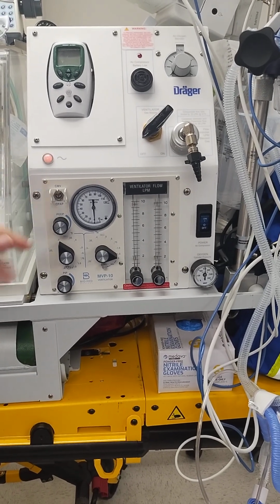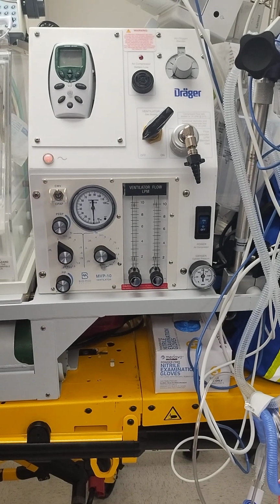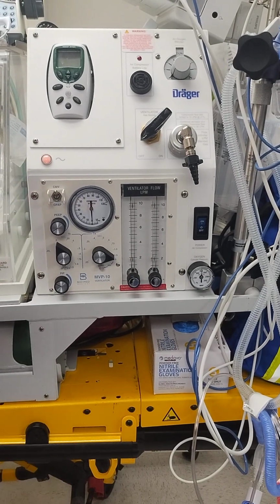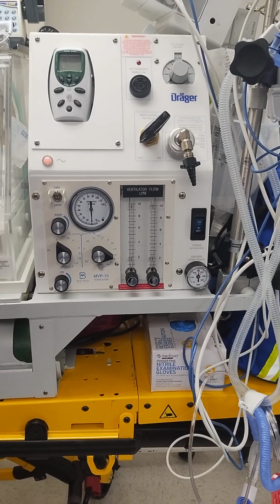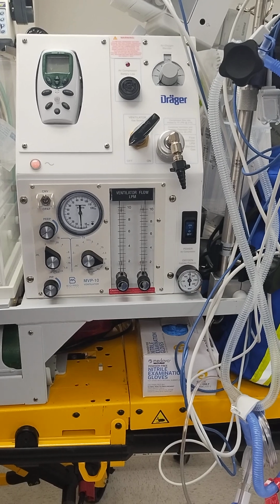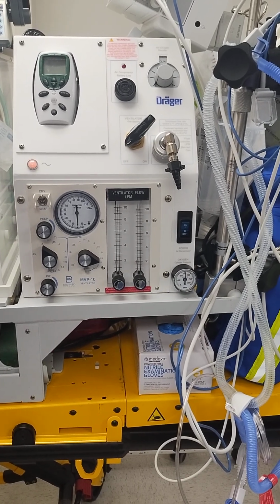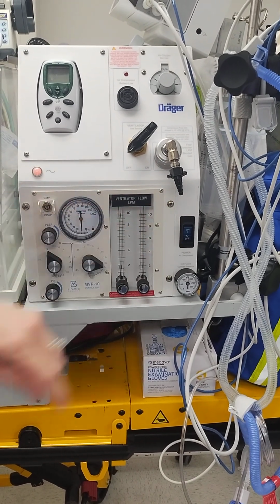Okay, so I turned the vent off for the time being. I've shut it to off on our gas source. Now if we are back to UT Health and we are going into the NICU, we're going to plug in our air and oxygen into our wall outlets, and then we can turn off our tank and our air compressor here.